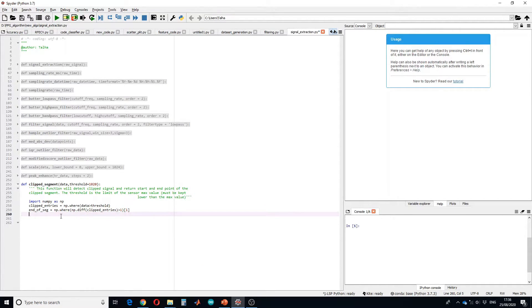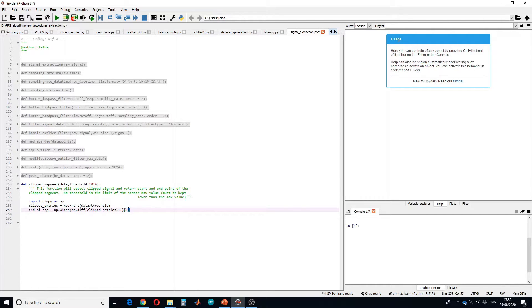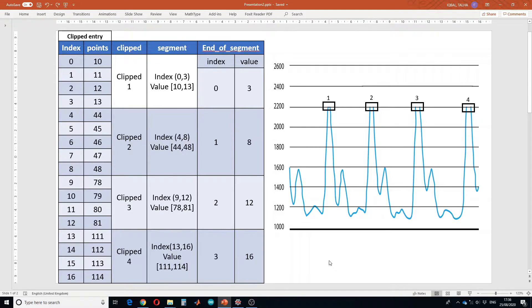This code returns two columns. In the first column we have all the entries whose difference is less than or equal to one, and in the second column we have all the entries whose difference is greater than one. We keep the second column for the next step, which is to detect each clipped segment by running a loop.